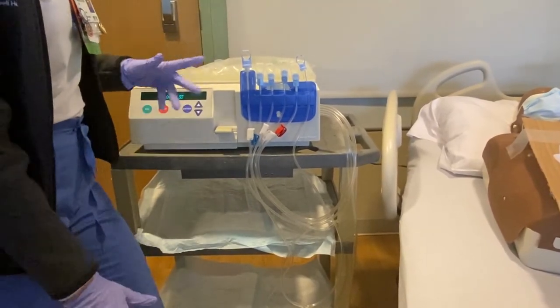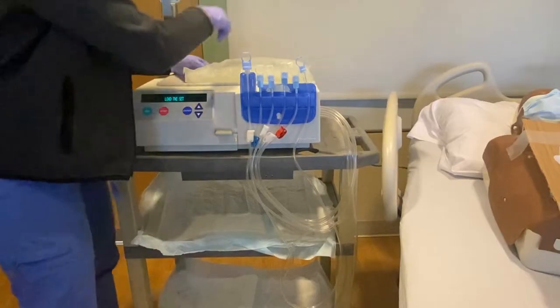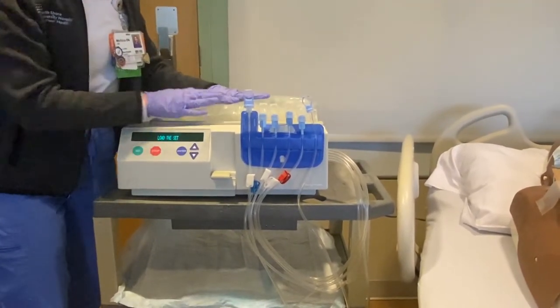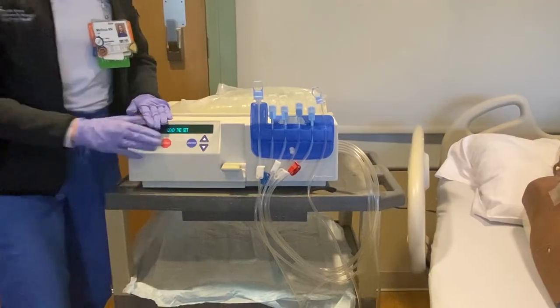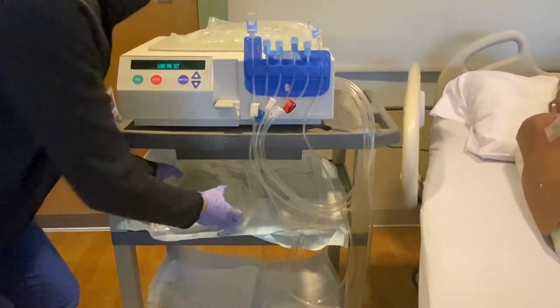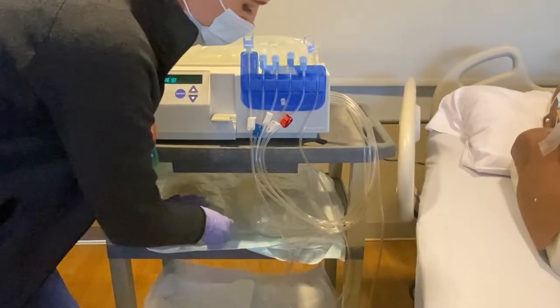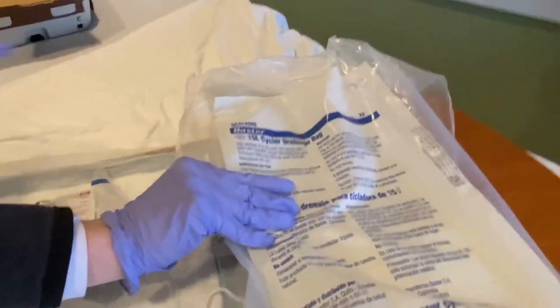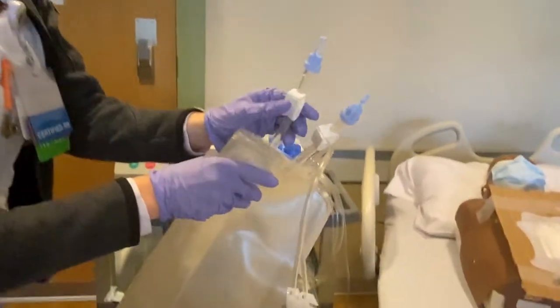Ensure all bags are in the room. We have one warming — three liters of 2.5% dextrose. Our total volume was eight liters, but we need excess to prime the lines, so we'll do nine liters total — we have two more three-liter bags. We also need our drain bags — two come in one package — and again we want everything clamped off.